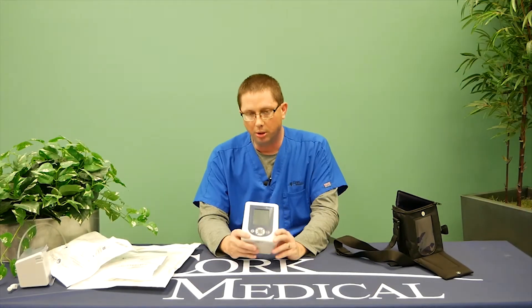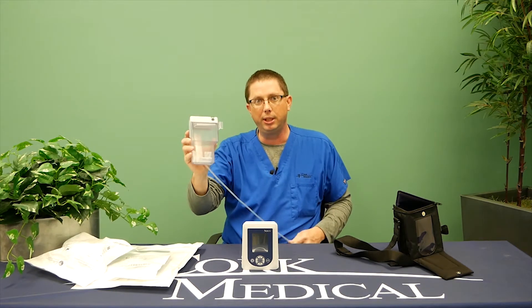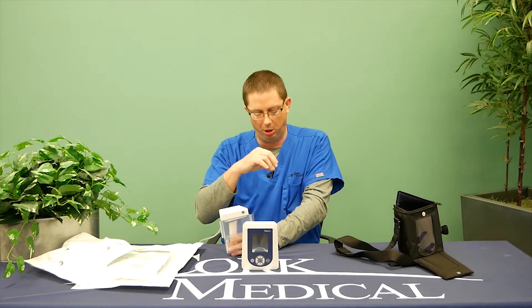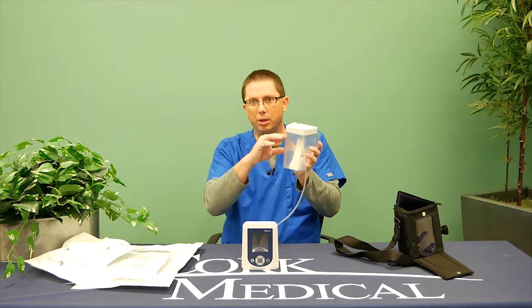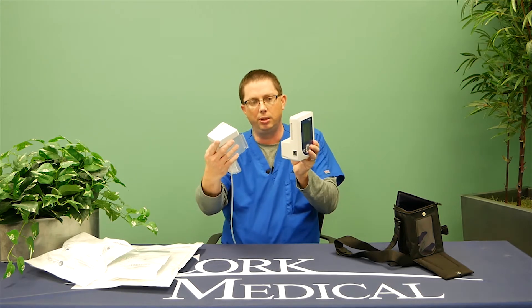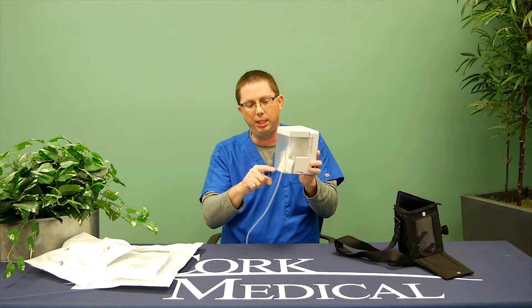Also with the pump, your nurse will change your dressings three times a week. In your box of supplies you'll be given canisters — canisters is where the drainage goes. Negative pressure is nothing more than a simple human vacuum cleaner. Your home health care provider will cut the foam to fit inside the wound, cover it, and put a little suction device on it, removing the excess debris and drainage from your wound, which in turn aids in healing. Your canister is where the drainage goes. These are sealed and changed once a week or when they're full. Your home health nurse will initially attach it by hinging it in place, and you will see it fill up with drainage.